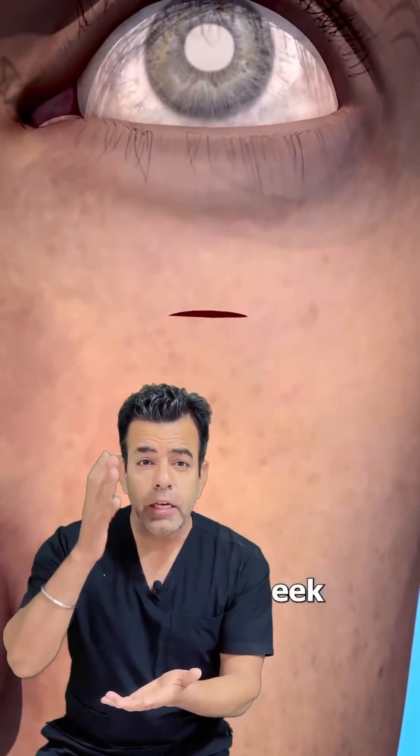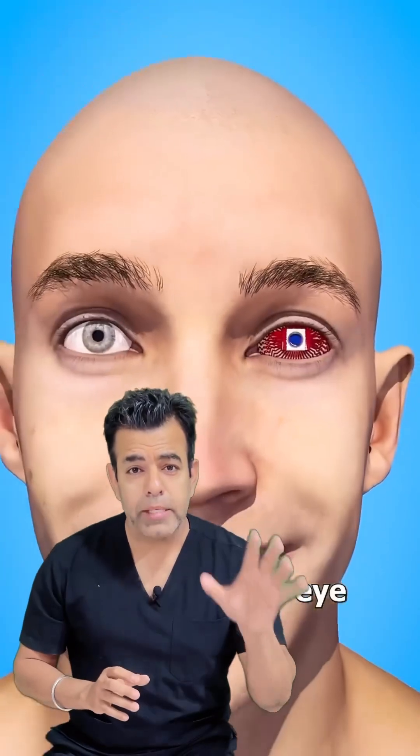Now I'll tell you how it works. With tooth extraction and patient preparation, a thin layer is cut from the tooth and a hole is drilled to fit a cylindrical lens. Then cheek implantation happens, where the prepared tooth-lamina-lens complex is implanted into the patient's cheek to grow new blood vessels.